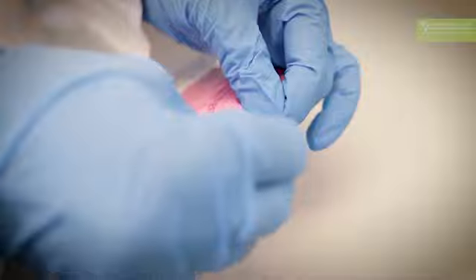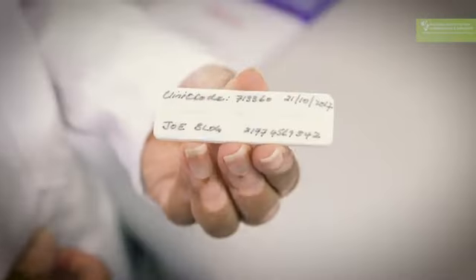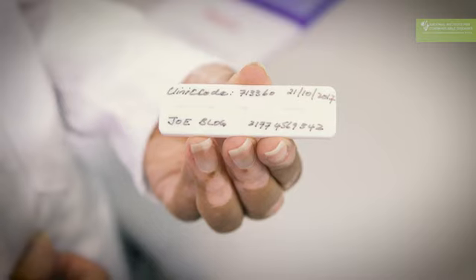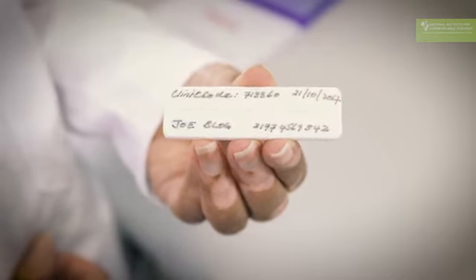In addition, once you start the test, you have to make sure that the rapid diagnostic test has some patient information written on it before you start the test. Always have the patient's name, the date that the test was done, as well as the clinic name or clinic code. This ensures that the patient and the patient result can be linked to each other.